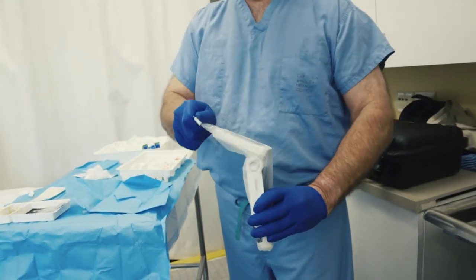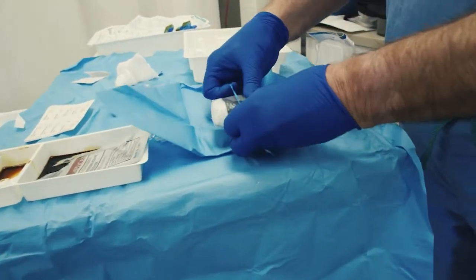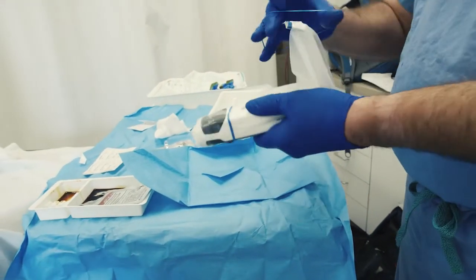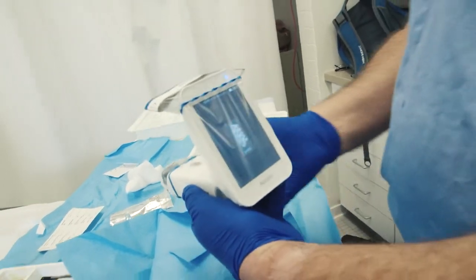the cover opening can be joined together. Finally, rubber bands included with the instrument cover kit are placed over the hand grip region to ensure a tight fit of the sterile cover over the transducer. With the Accuro Sterile Instrument Cover Kit, sterile scanning can be performed while still operating the touchscreen.